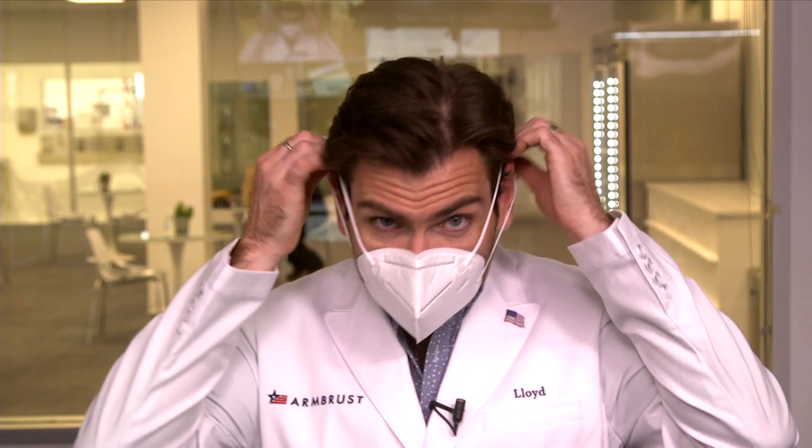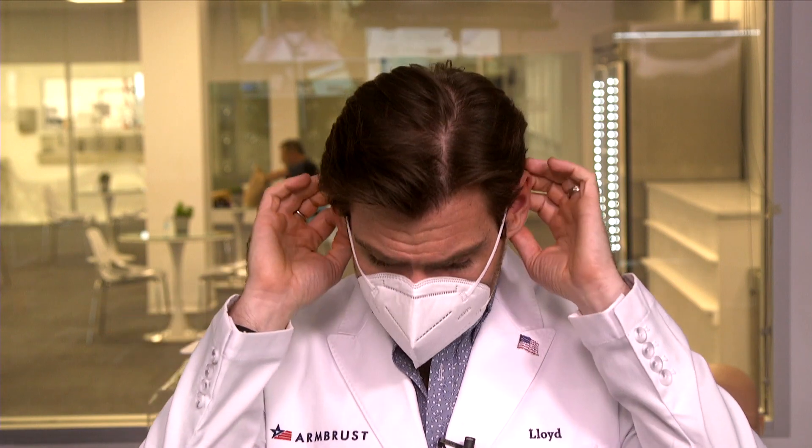This mask is really breathable — about 119 pascals, so that's great. You want to be under 150, and this one's pretty good. Testing the ear loops — wow, that's sad. Half the ear loops are great, the other half not so great. I can't give them good marks on that. Putting it on — wow, this is duck bill central. It fits, it's very soft — extremely soft actually — and fits my face nicely.